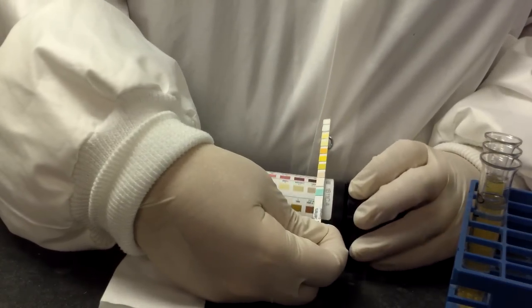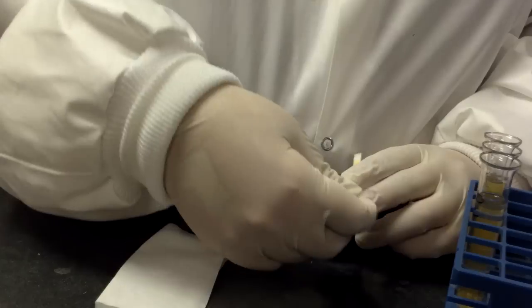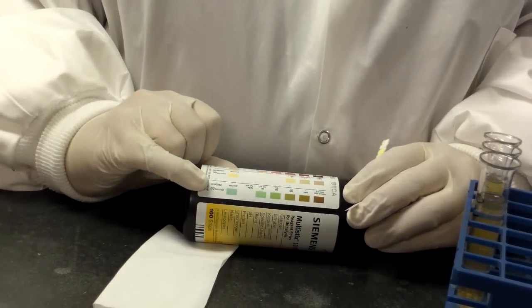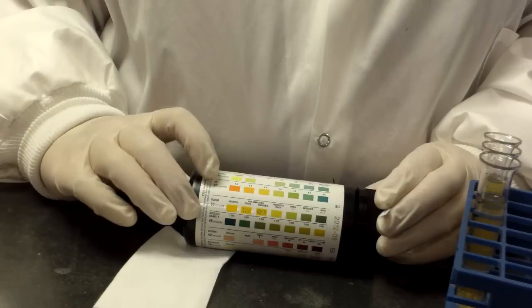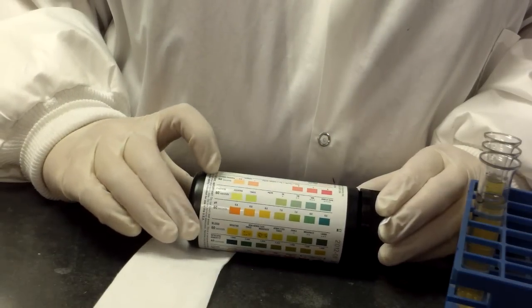If you get lost, go back to the beginning and start again. You don't want to read the first one before 30 seconds, but the middle ones by the time you've read it are close enough on time to read at 60 seconds.